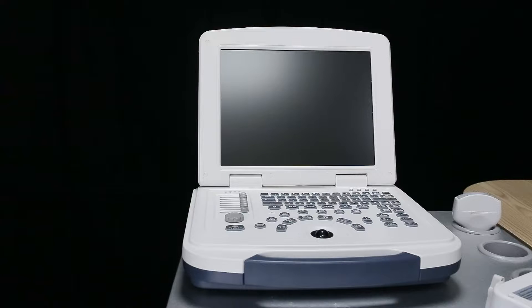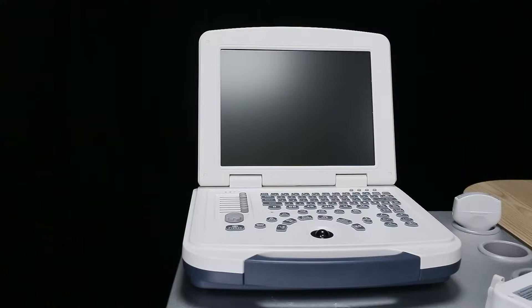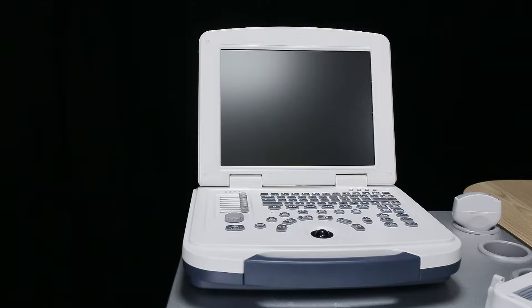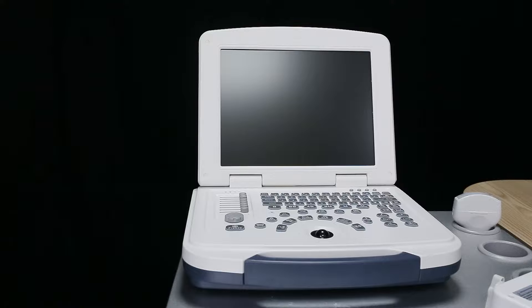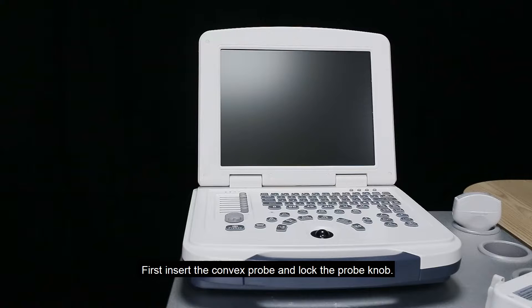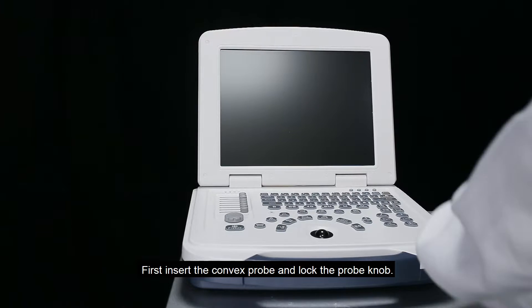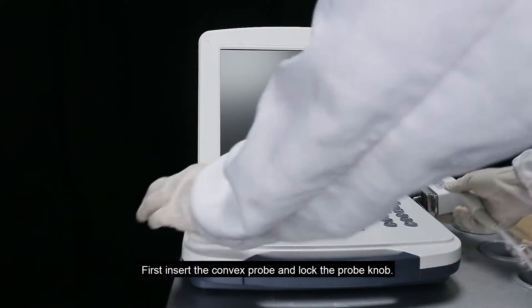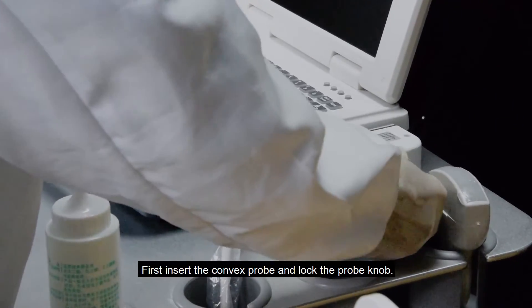This video introduces all the functions of the obstetric measurement package and its functional demonstration. First, insert the convex probe and lock the probe knob.